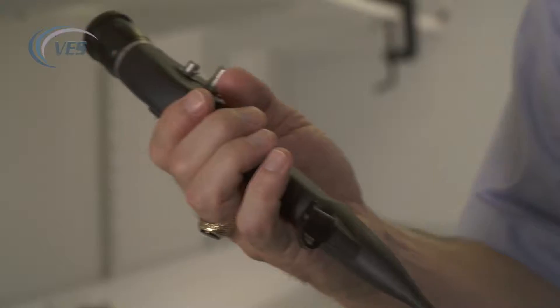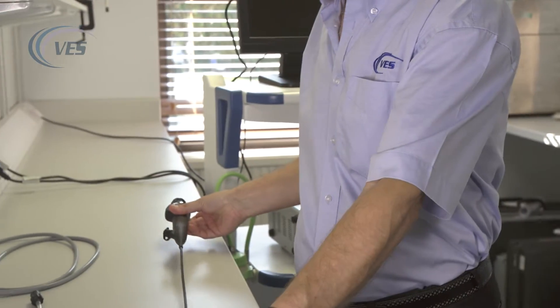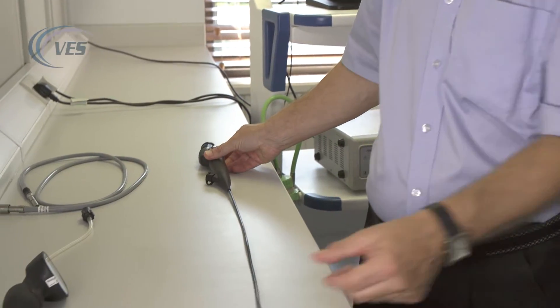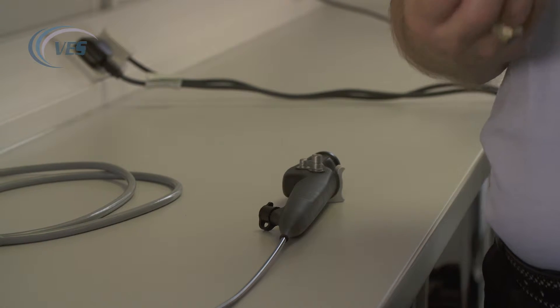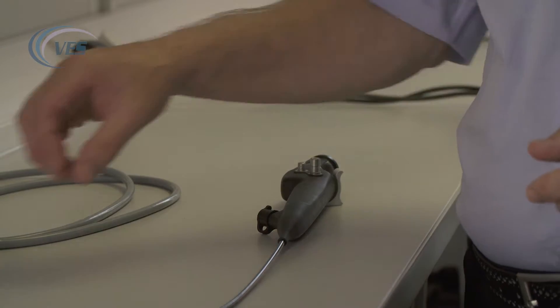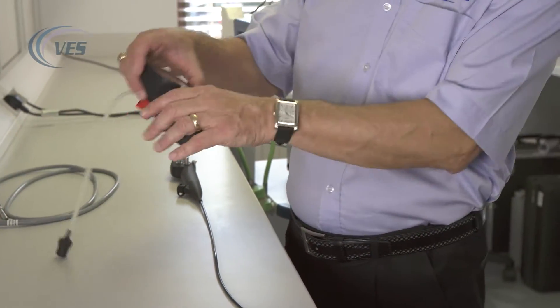It is important to leak test the scope prior to preparing your patient. If the scope has a perceptible leak, then it shouldn't be presented to the vet. In order to check that we have no leaks, here we have the leak tester.